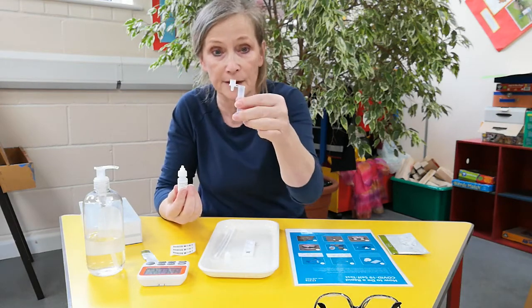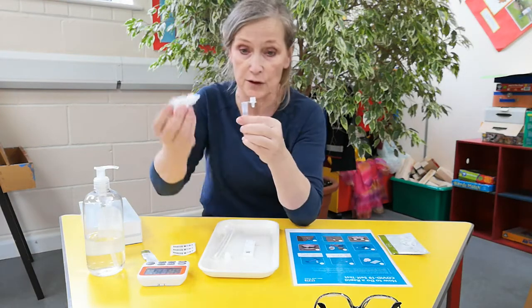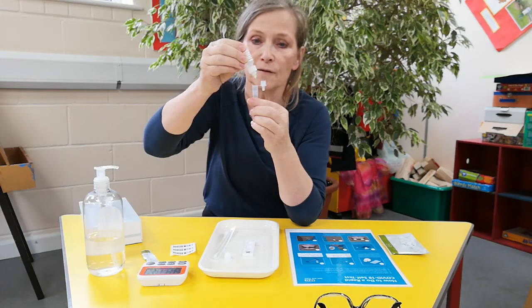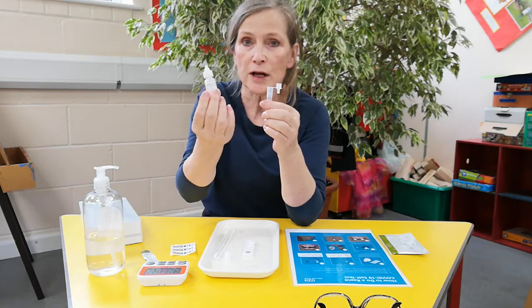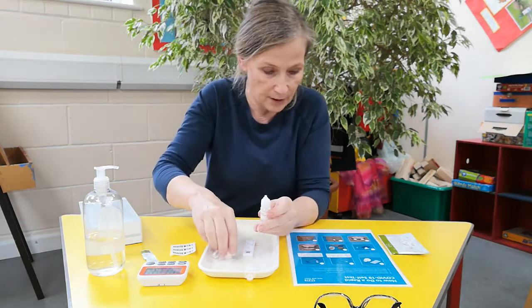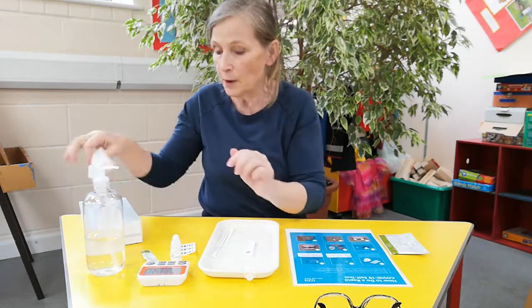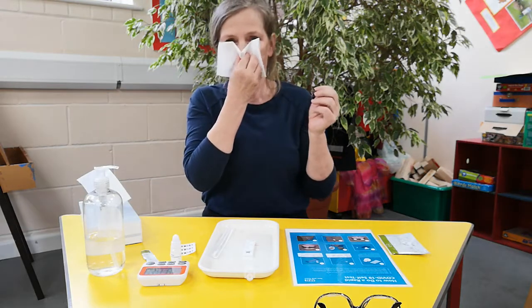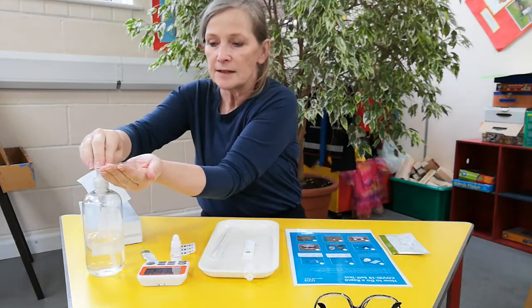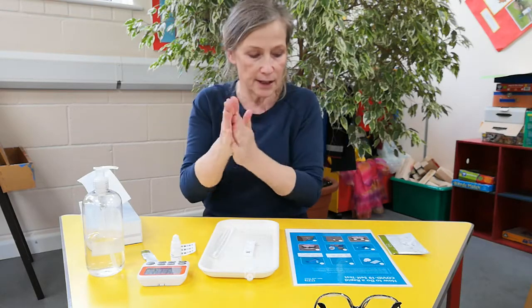Then get your little pipette. You're going to put six drops in — don't worry, it's all written down, you don't have to remember it, you just have to do it. So gentle squeeze: one, two, three, four, five, six — just gently squeezing it and the drops will come out. You'll get used to it. Then you can put your lid back on. Now you blow your nose — that's just to get rid of any big bogeys. Sanitise your hands; you should all know how to wash your hands properly now.